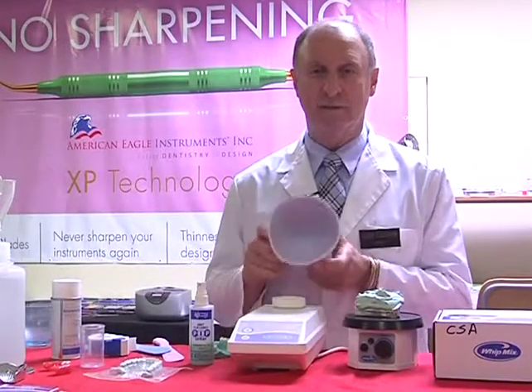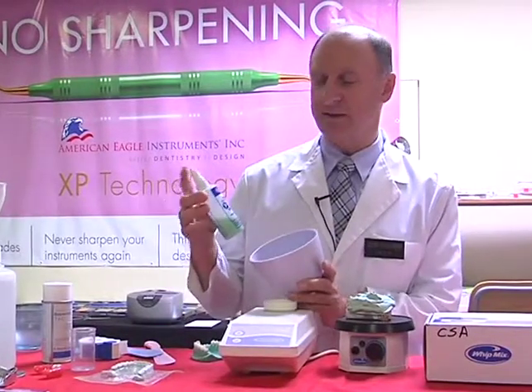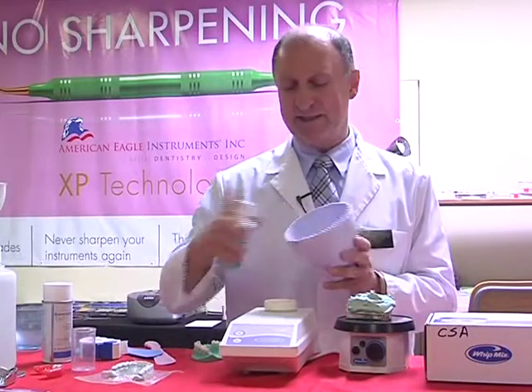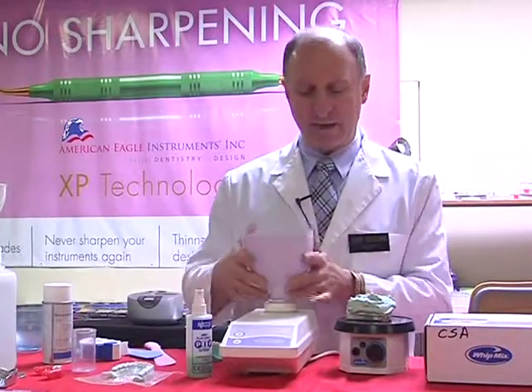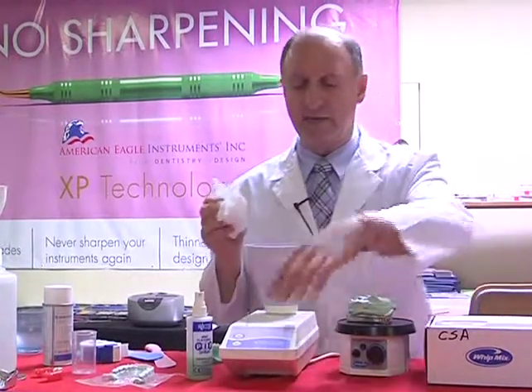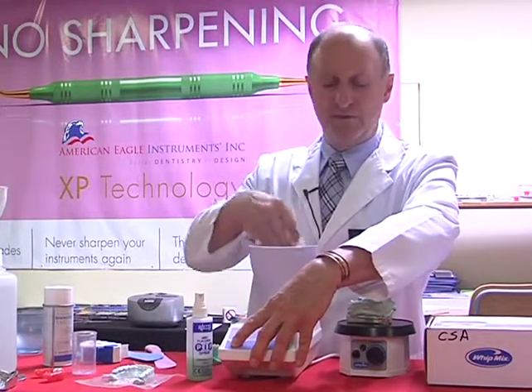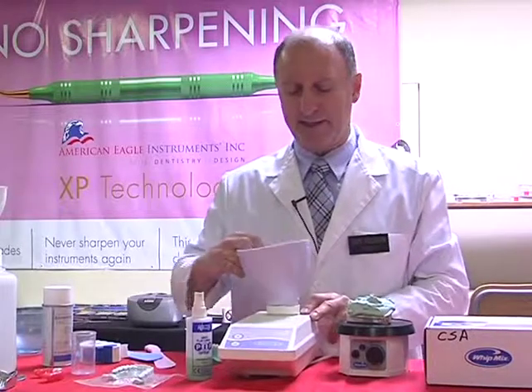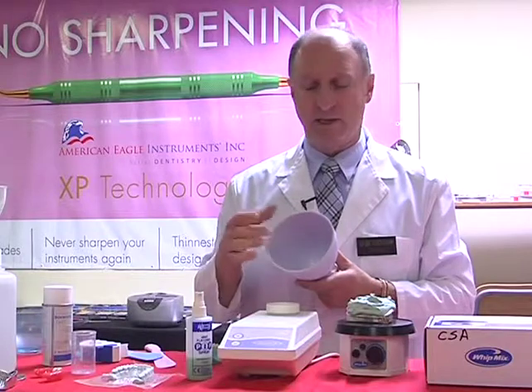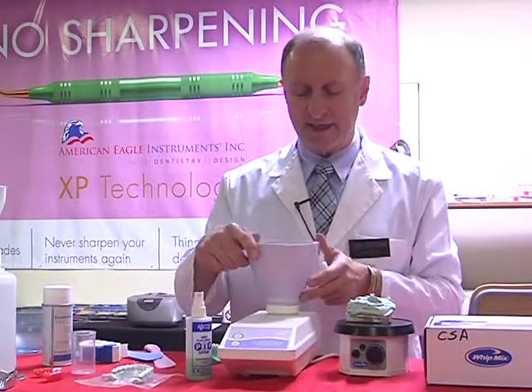Our bowls, we want to just make sure there's no residue left inside. So what I'm going to do is use a material that's called the Mizzy PIP spray that's available from your dental supplier. By spraying this inside, wiping with a Kleenex, 2x2 gauze, whatever, or in this case, Kleenex, and just lightly wiping through, just removes any residue that was inside the surface. It imparts a non-stick, almost like a silicone solution, and also disinfects the bowl. So now I know I'm safe, ready to go. So our bowls are nice and clean.